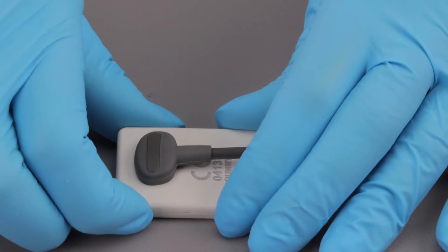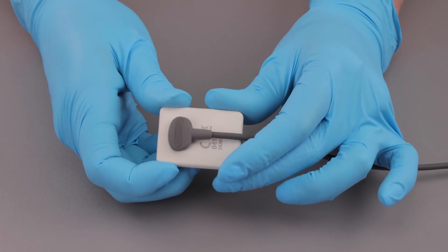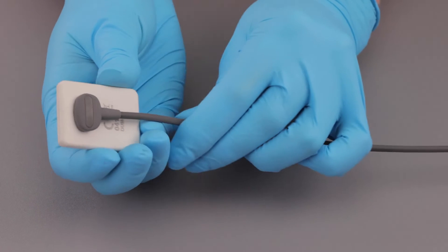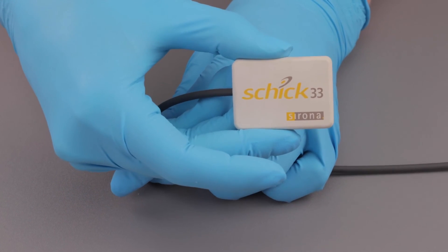You have now completed your cable replacement and you are ready to get back to taking images with your sensor. Thank you.